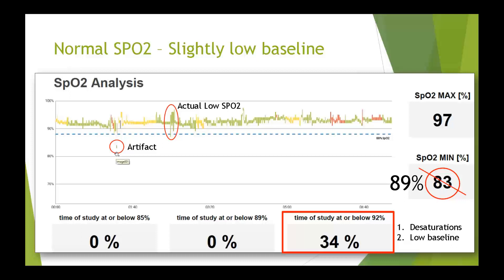The second clue is when you look at the body position in that section of the study — it's green, red, green, yellow, black — so this person is moving around trying to get comfortable. As soon as they get to their stomach, the graph normalizes. The actual lowest value a little farther into the night is around 89%, and that is the true low value. When dealing with any long-study report, it's a good idea to be able to recognize artifact.